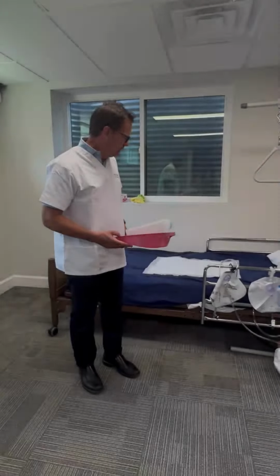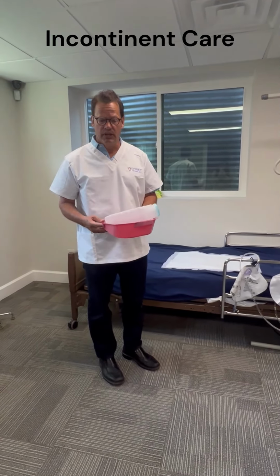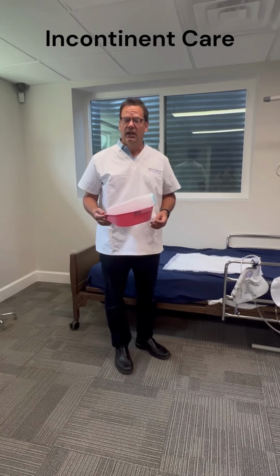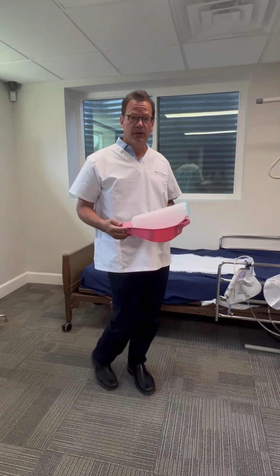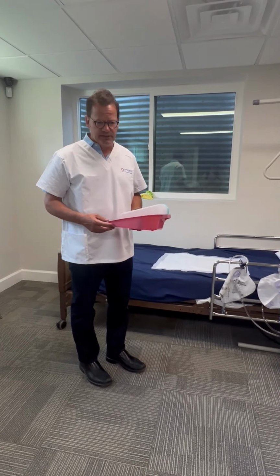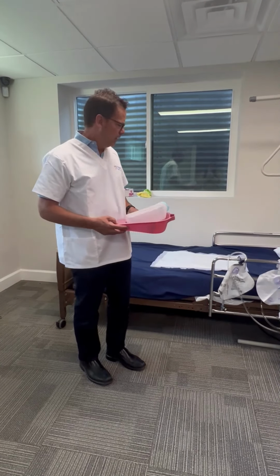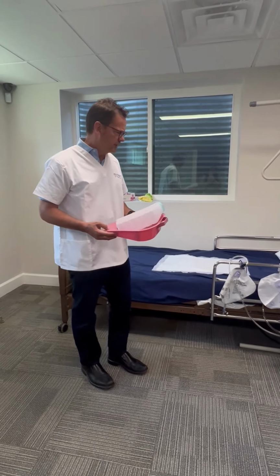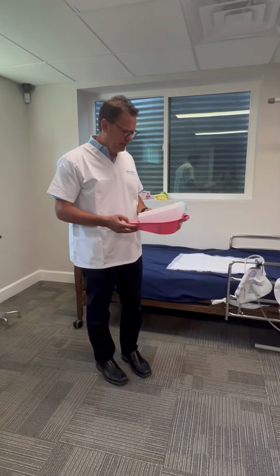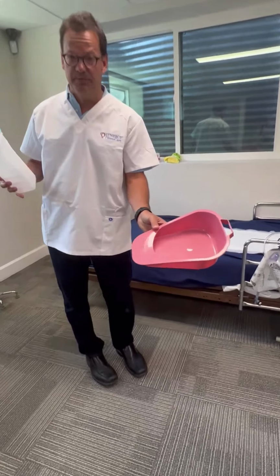We now want to introduce a few of the key elements that we would be using in a situation where a client would be bedbound, or if minimizing transfers because it's a device and it's just easier. The most common reason is bedbound, maybe a hospice situation. So a couple of common devices that we use, this would be a bedpan.